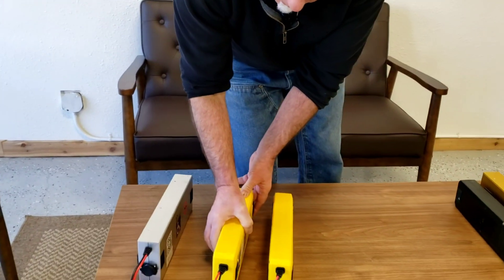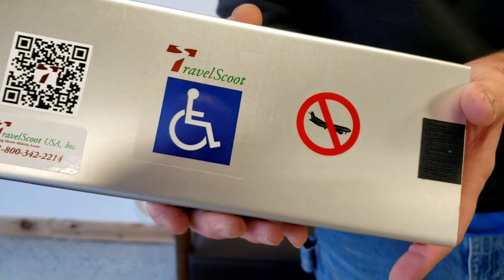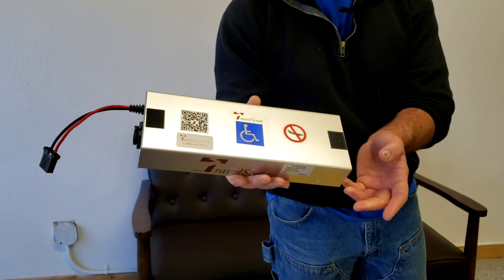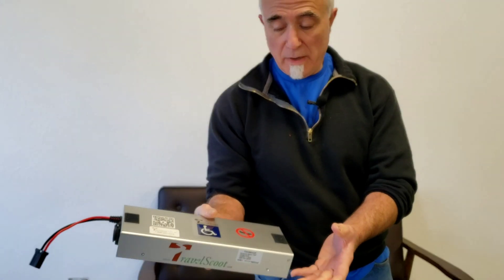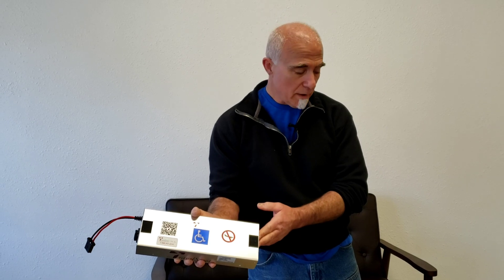Our third battery in the assortment is our clearly non-air-travel-approved so-called Long Ranger. It has a capacity of 420 watt-hours and you should expect somewhere around 18 or more miles per charge. This battery weighs five pounds and is clearly quite a bit different optically than the other two air-travel-approved batteries.